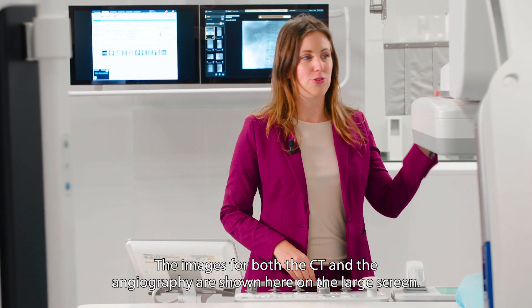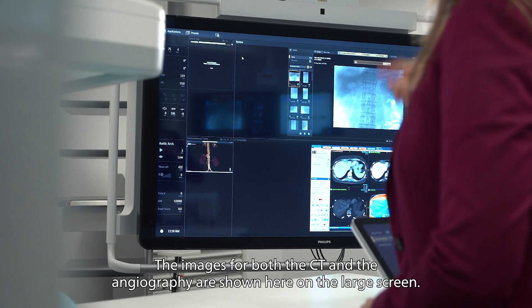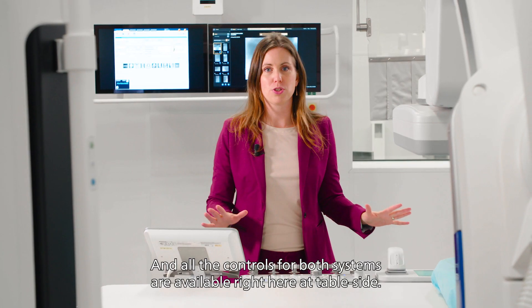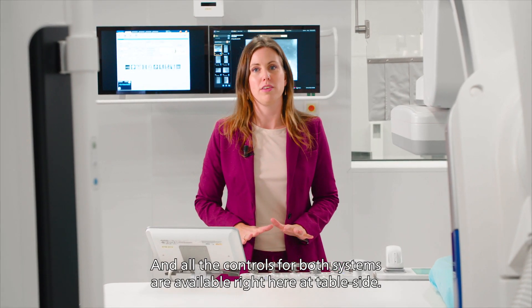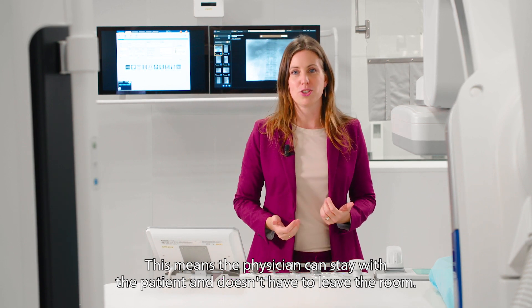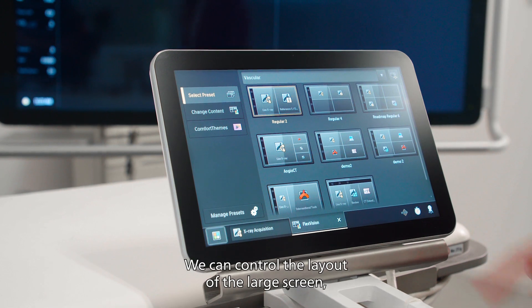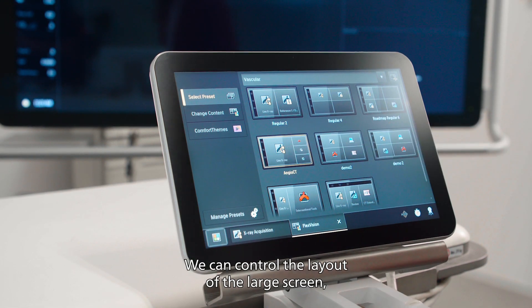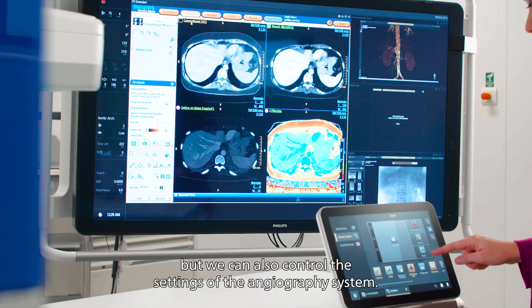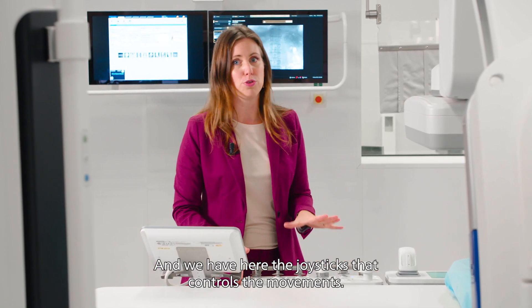The images for both the CT and the angiography are shown here on the large screen, and all the controls for both systems are available right here at table side. This means the physician can stay with the patient and doesn't have to leave the room. Here on the touch screen we can control the layout of the large screen, but we can also control the settings of the angiography system, and we have here the joysticks that control the movements.